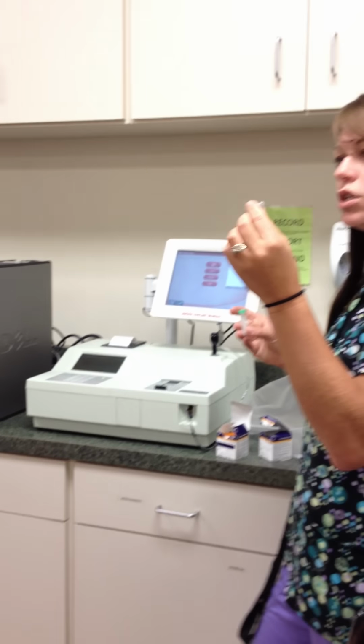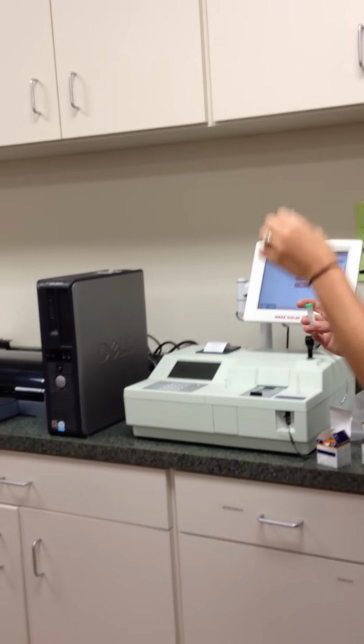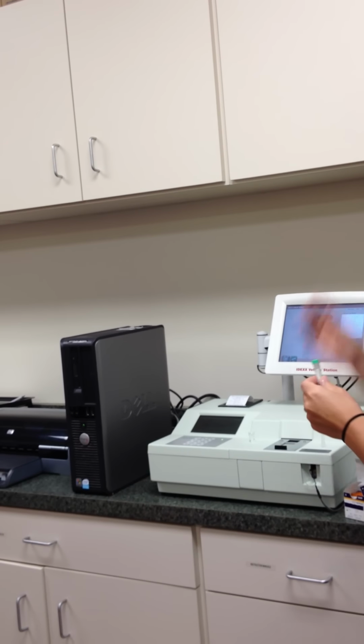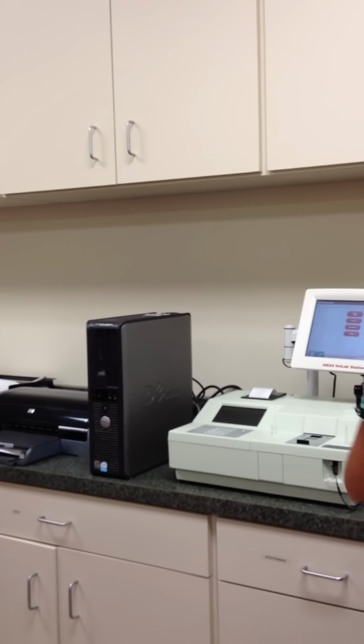Be sure when you go to use a pipette that you squeeze it before you stick it in the serum or in the plasma, because if you stick it in and then squeeze it, it's going to push that air in and mix your sample, and now you have to go respin. Okay? So pull out my sample, put it in my little Barbie beer mug.